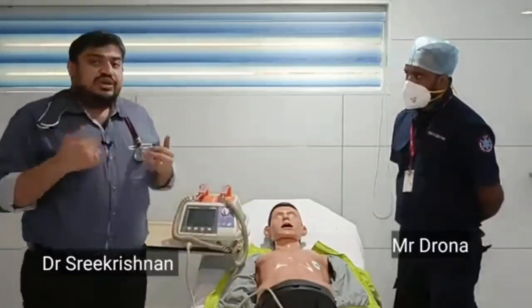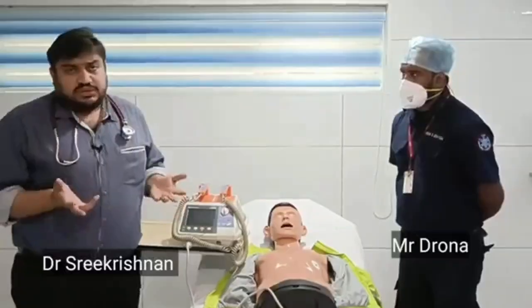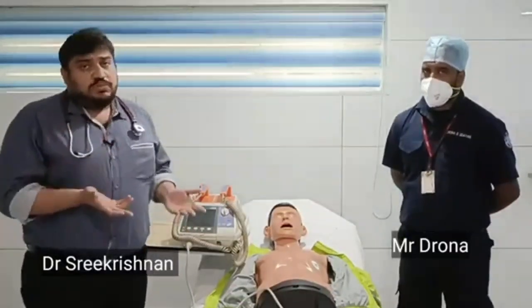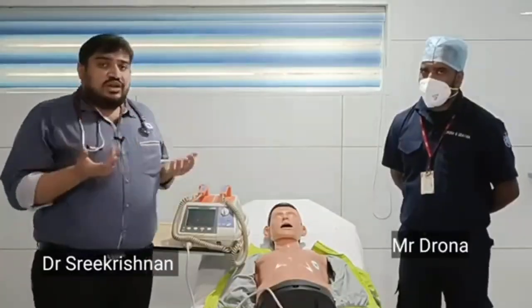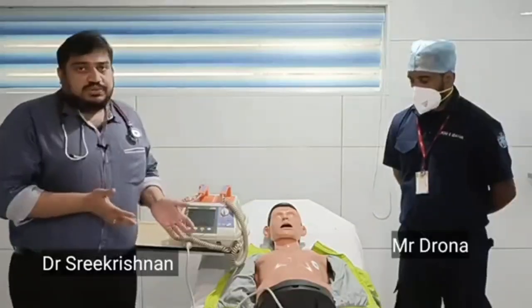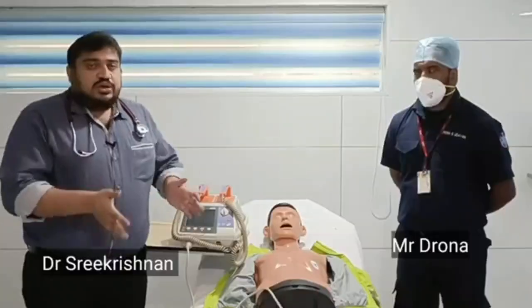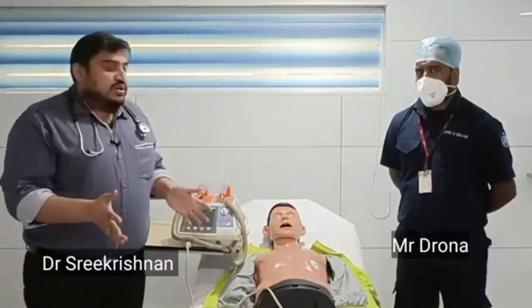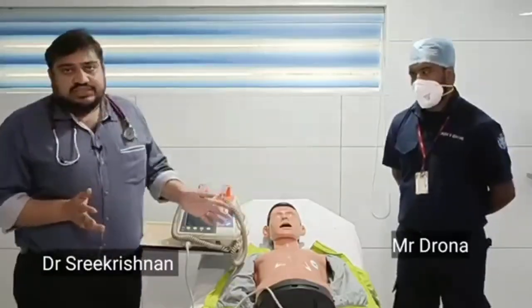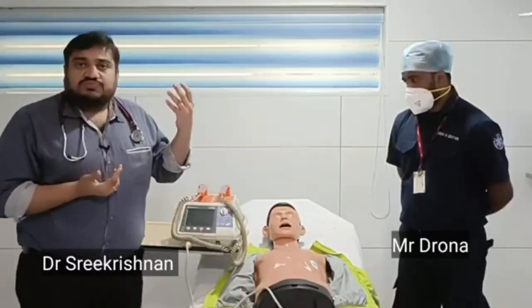And most importantly, as we discussed, the defibrillator can be used in multiple scenarios. The most important scenario where we use a defibrillator is in cardiac arrest, when you see a shockable rhythm like ventricular tachycardia or ventricular fibrillation. That is the time you need to use your defibrillator. When you use the machine for that purpose during cardiac arrest, we call it defibrillation. It is a fixed amount of energy and you are delivering it directly over the chest wall, one paddle over the right sternal border and one over the apex. So that is one way of using your defibrillator, for defibrillation.